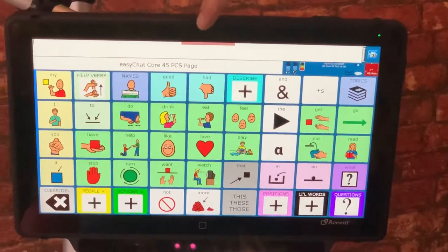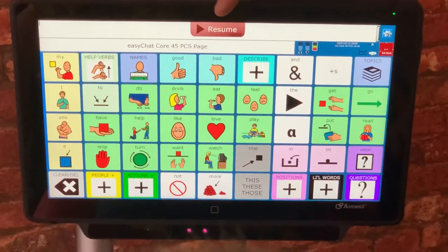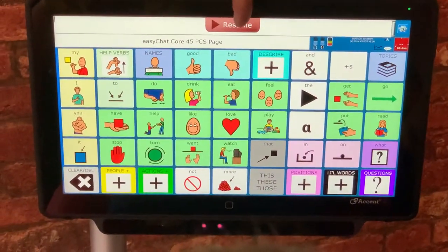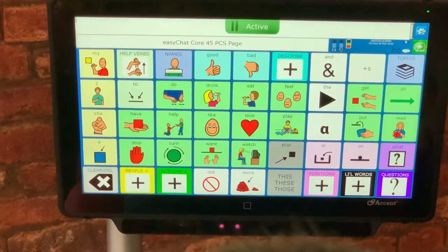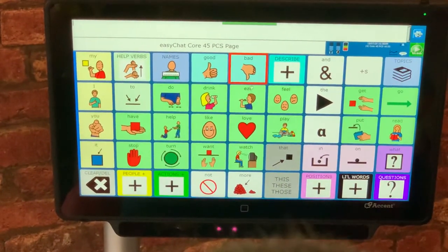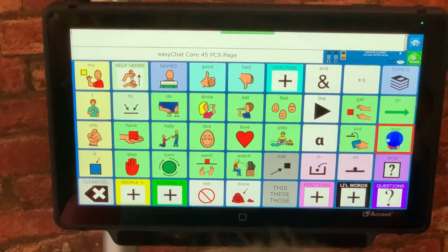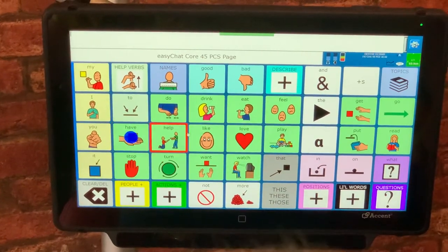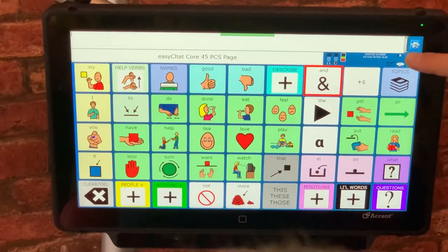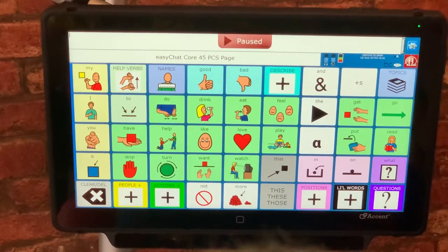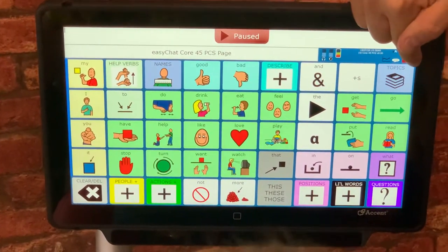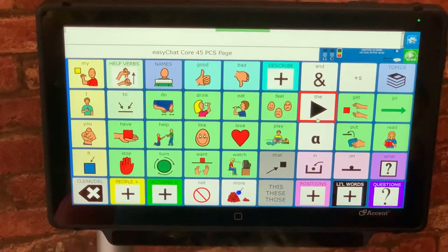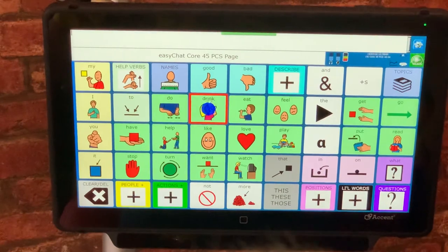Now there is a red line here and in fact the device user or client can actually look up themselves at this button and activate the screen and it will select and allow them to select or dwell on screen. Or I can press this little button here that pauses and resumes it.